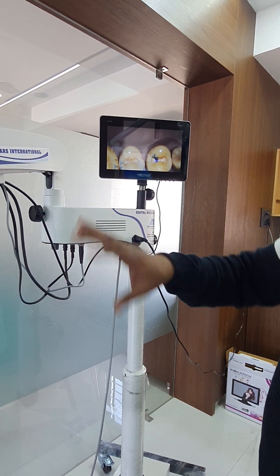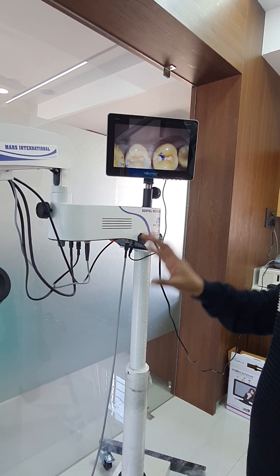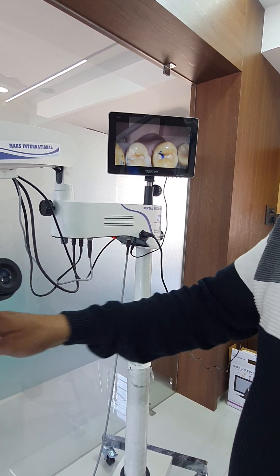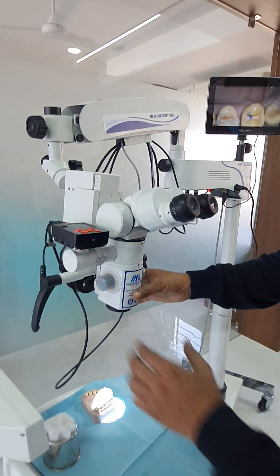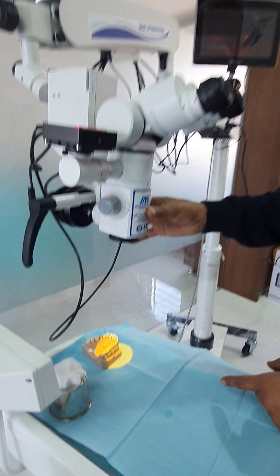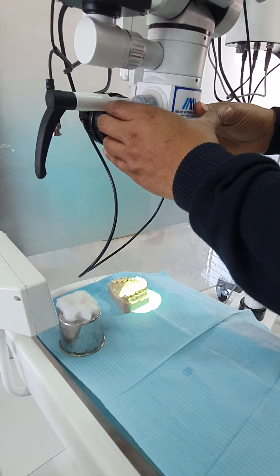From one power source, we can operate all the functions — camera, screen, everything — operated by the light source. It is an LED light source. You can change the filter; the available filters are orange, white, and green.